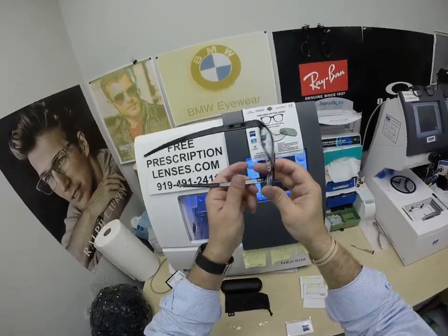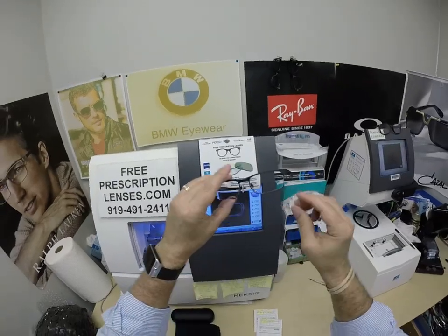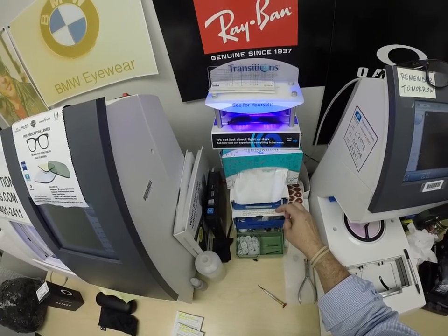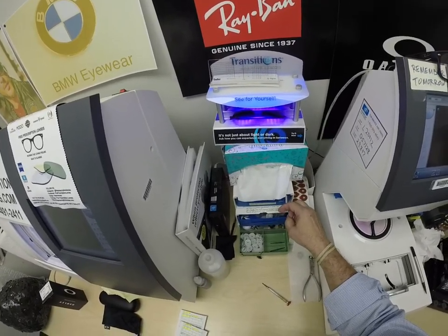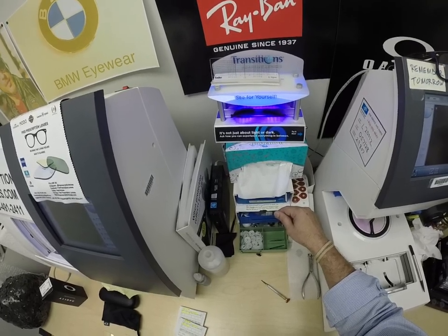This is what his lenses look like while they are clear. Let me go ahead and expose them to a strong burst of ultraviolet light. As you can see, it takes about 30 to 45 seconds for the lenses to darken, a little bit longer when you come back inside — 45 seconds to a minute, minute 15. Steve and everyone else, pay attention.